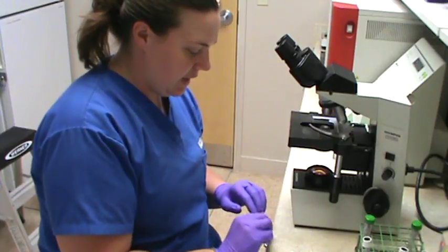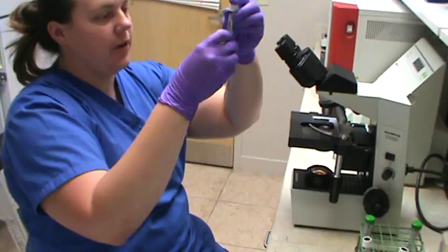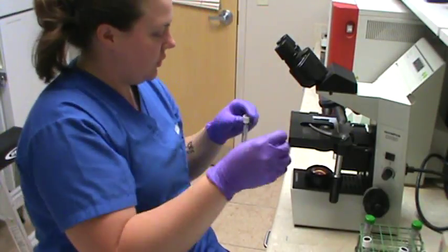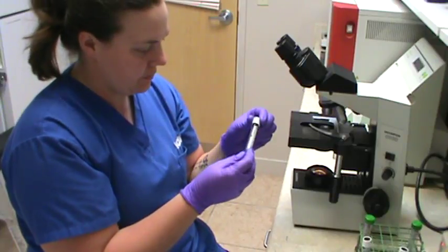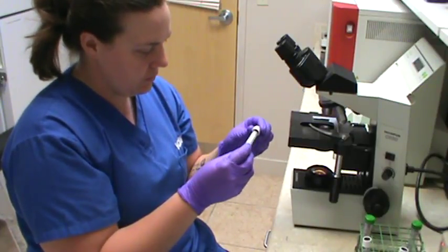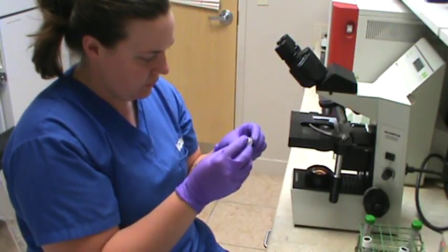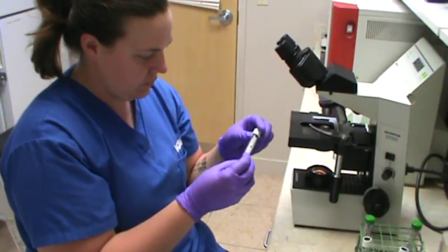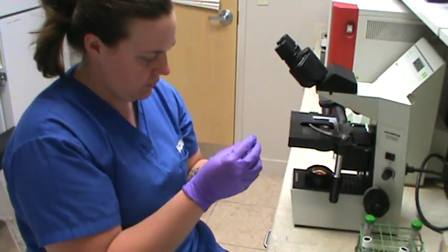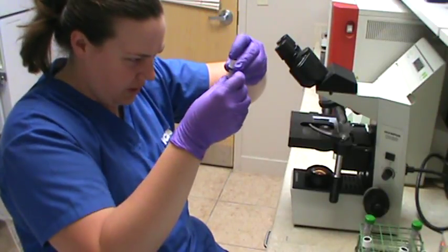Okay, so then we're going to do the same thing. I'm going to take my slide that's labeled as minor and my tube that's labeled as minor, and we're going to resuspend it. So we're going to mix it up a little bit gently. Alright, now that we're nice and mixed, we're going to take a peek.